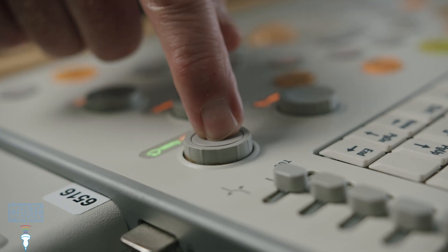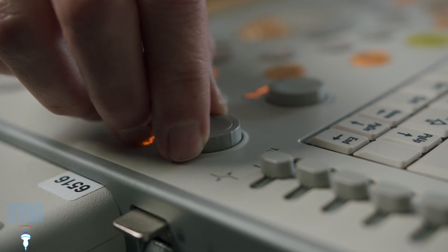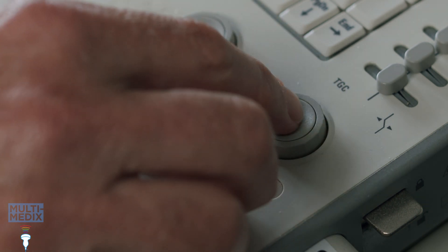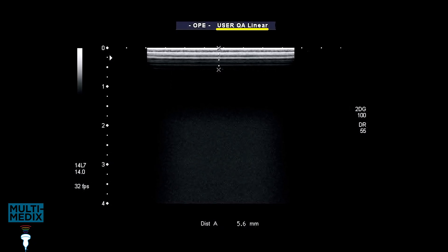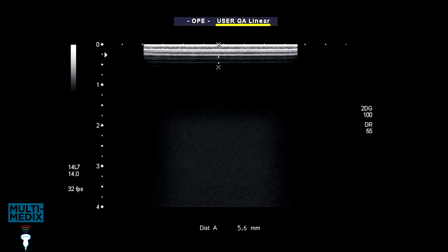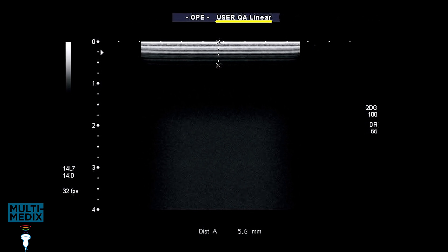Having found the correct settings, it's then important to ensure there's some noise in the image with maximum overall gain. This might mean increasing the scale setting until noise appears. Occasionally this doesn't show any noise and I would then increase the TGC to maximum and repeat the whole process. The user QA settings have now been found: the frequency and gain that gave an unequivocal deepest reverberation and the scale that showed distal noise at maximum gain. I save these as a preset at this point, with the probe identified in the name.